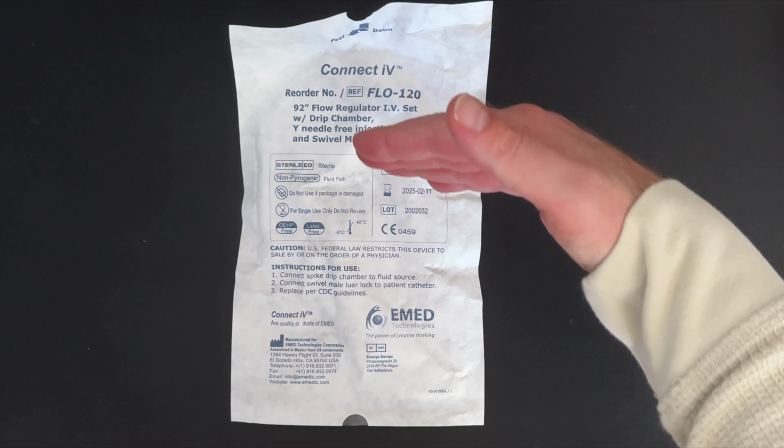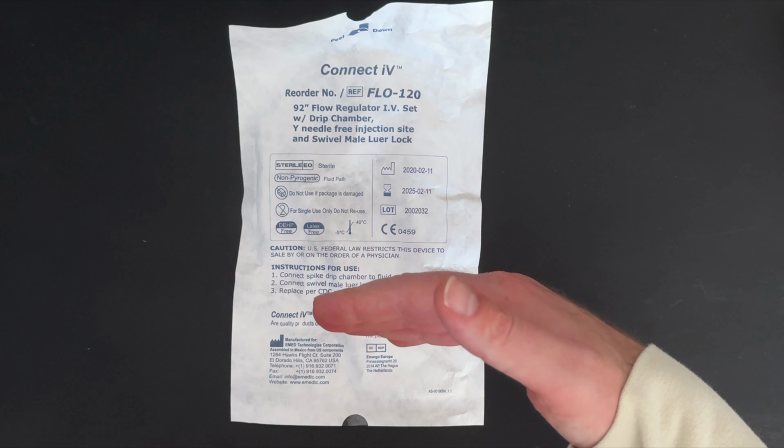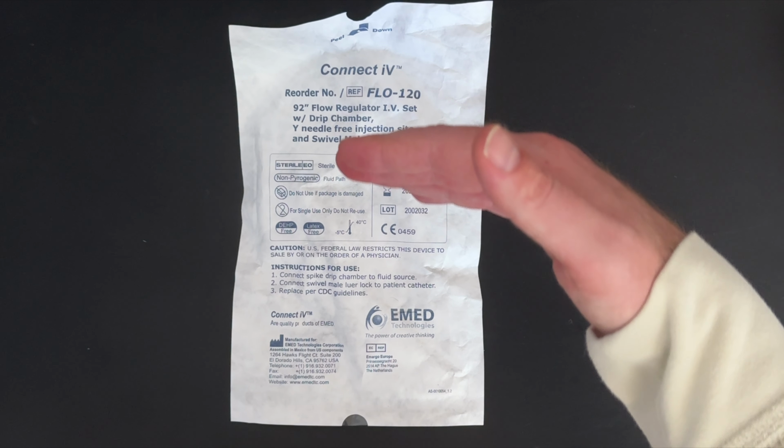This is going to be a bonus section that will give some helpful tips when utilizing a dial-a-flow device. First, you will have your package and it is important to verify what the GTTs per mL are for the device that you are using. This is to ensure your calculations will be correct for your drip rates.